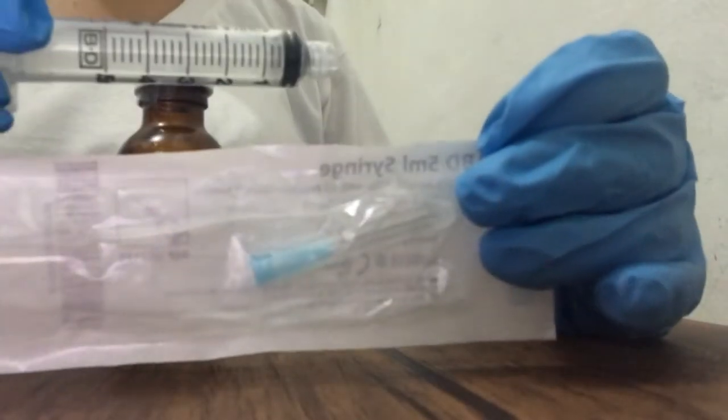Wash your hands and gather the equipment needed. Prepare the medication for one client at a time.